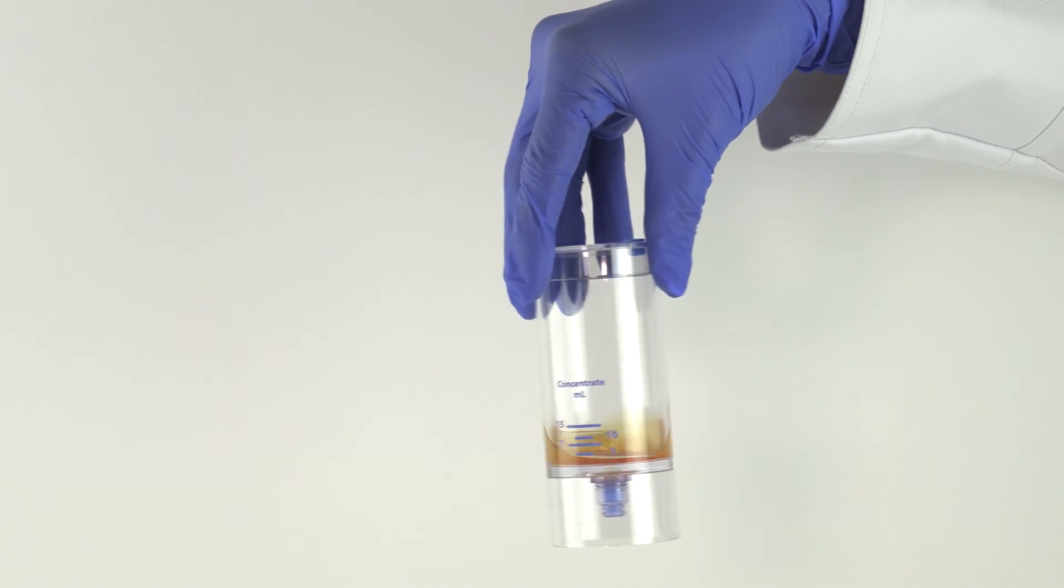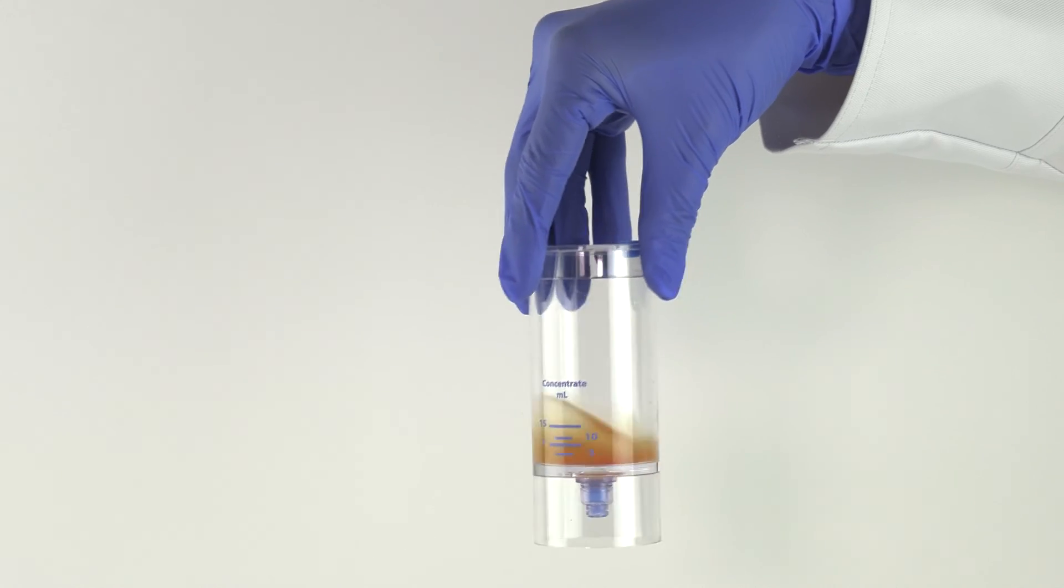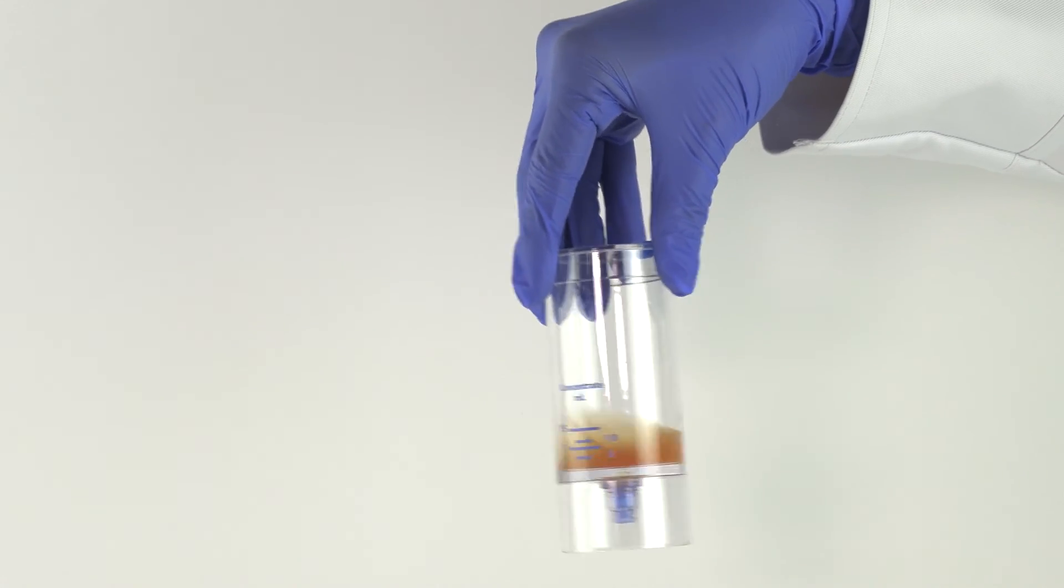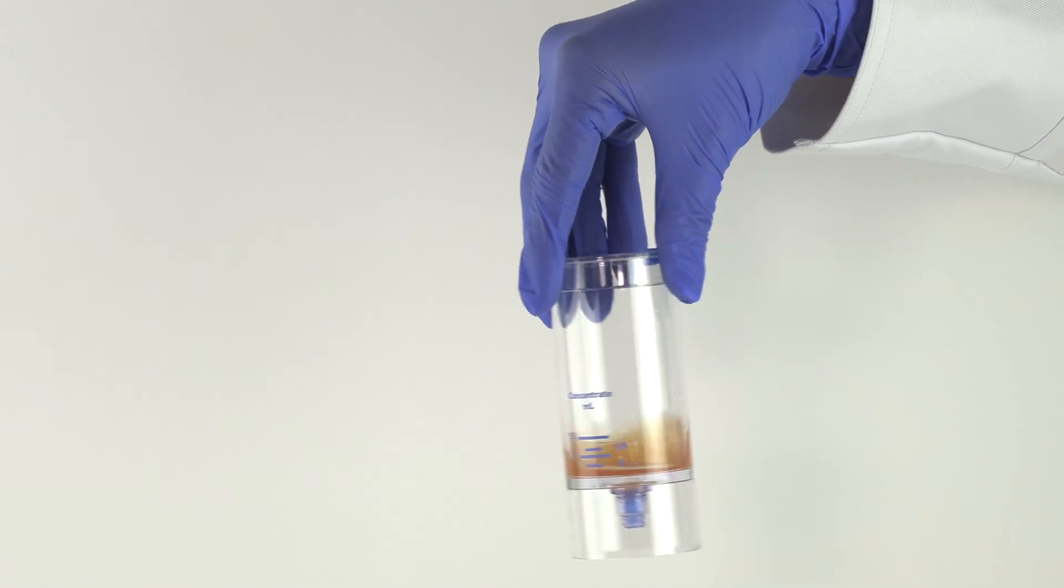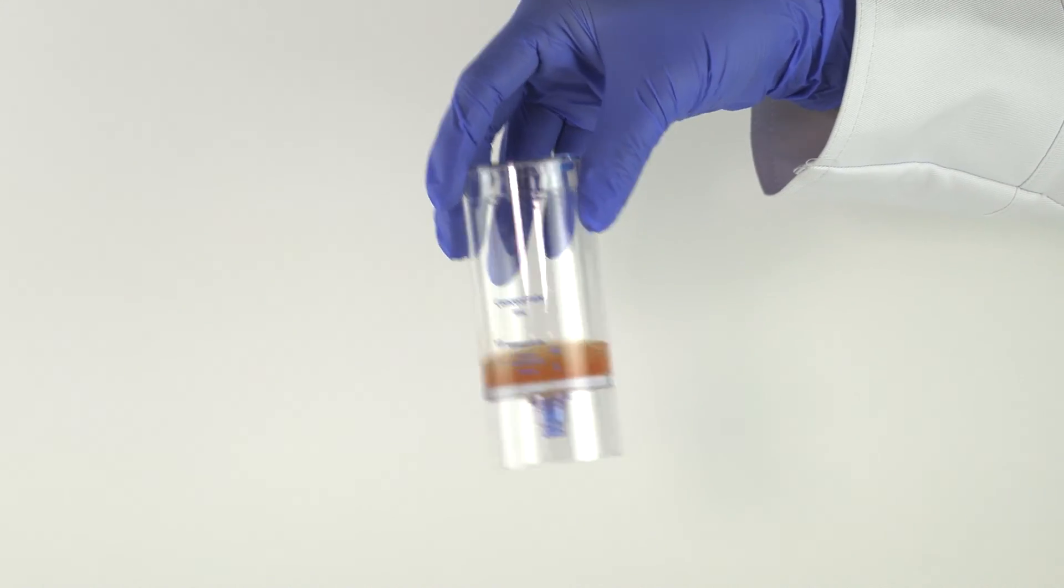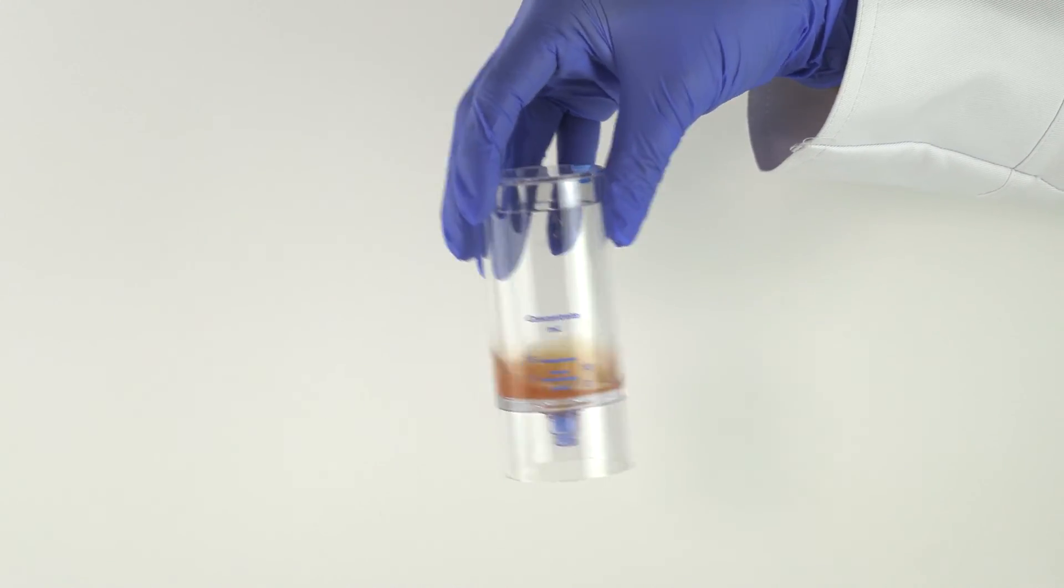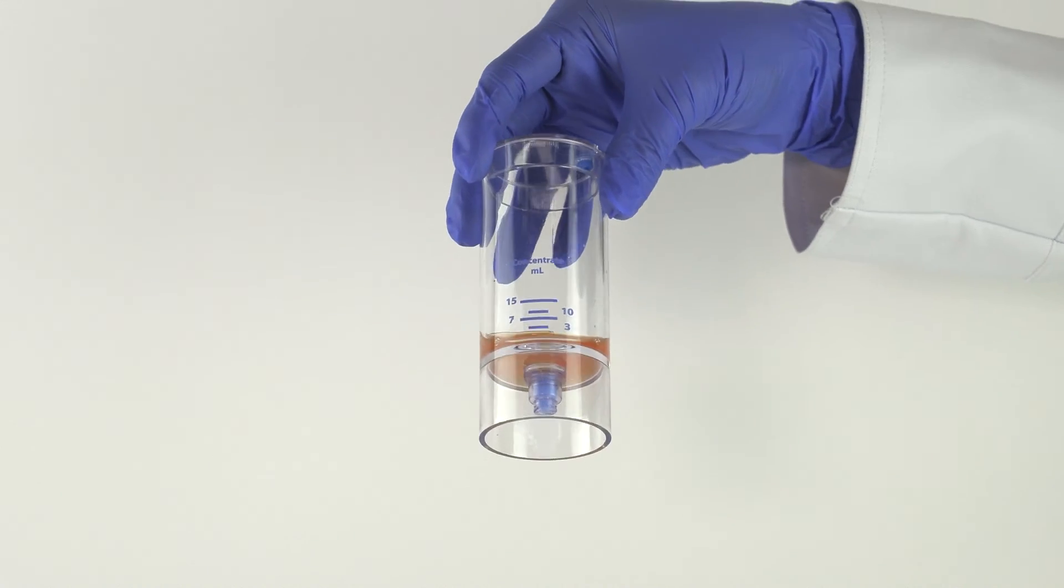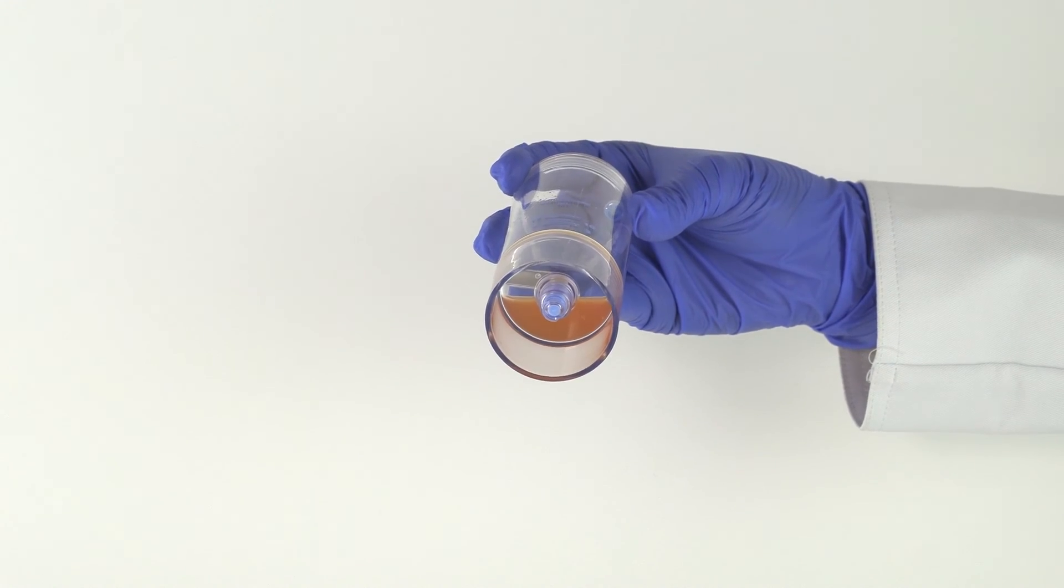Re-suspend the platelet buffy coat back into the plasma by rocking and swirling the device back and forth. Do this until all of the platelets have been re-suspended into the plasma solution and are no longer visible at the bottom of the device.